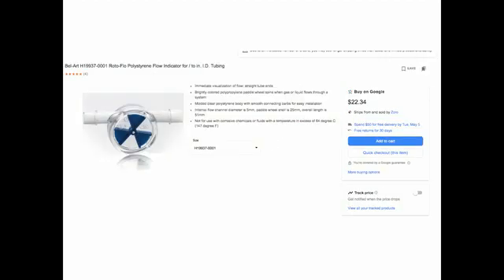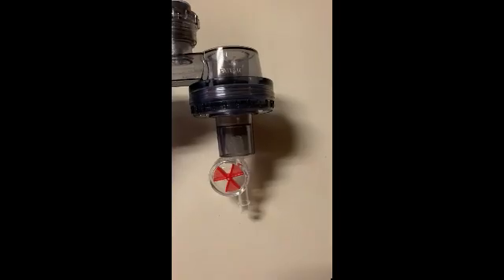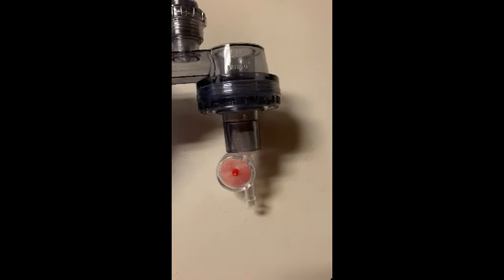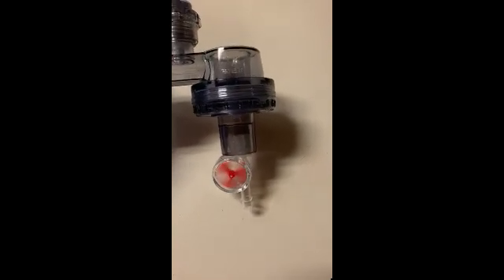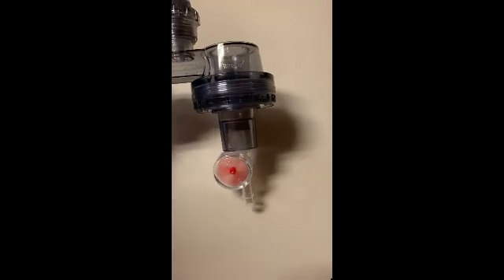This slide shows the rotoflow indicator used in this video. It can be used as a flow indicator if interposed at various points in the patient respiratory circuit.